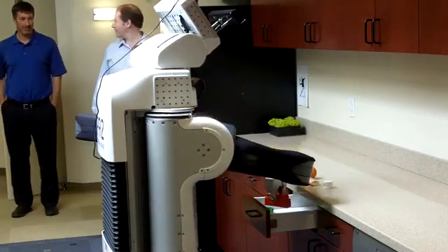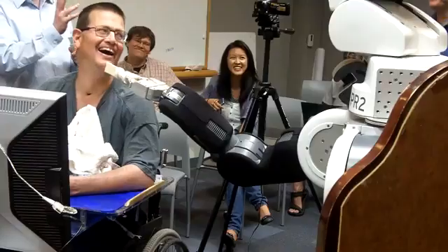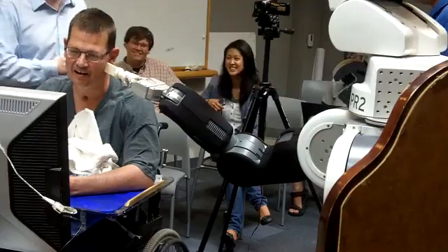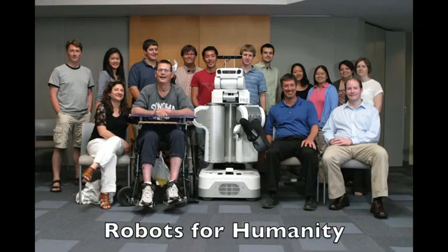Robots that complement human abilities are extremely valuable, especially when they allow us to do things we can't do by ourselves. Our goal is to enable robots and homes to help people like Henry, and this is just the beginning.